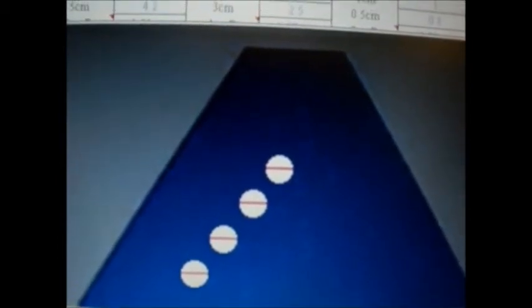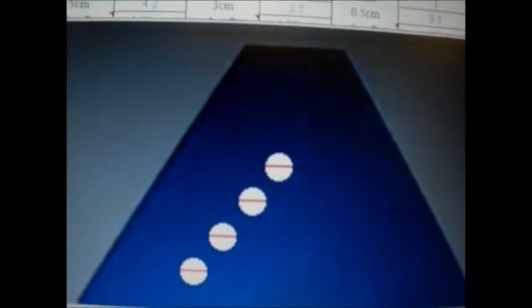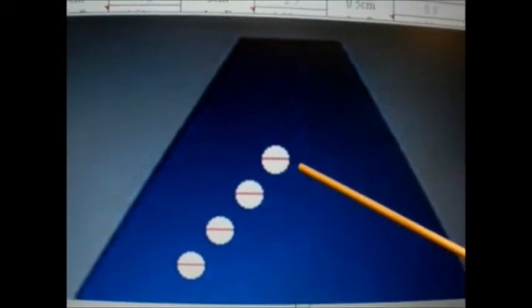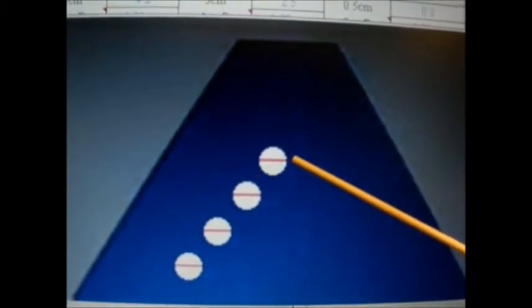Moving along to high scatter. High scatter is used to measure white or tumor-like tissues at, again, 2cm, 4cm, 6cm, and 8cm in depth. We will measure and record the diameter of the cyst as shown here.